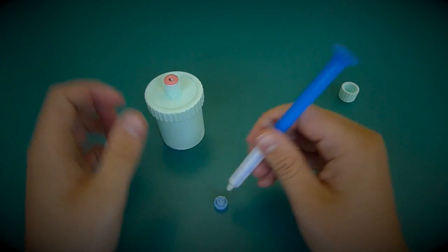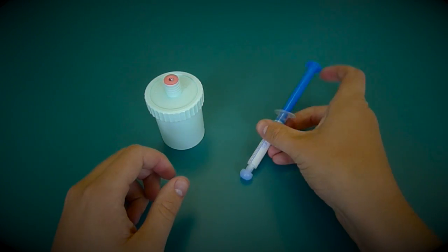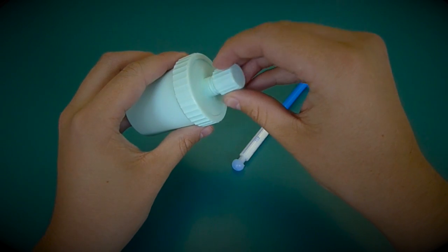Remove your syringe and place the tip cap back onto the syringe body and place the cap back onto the EMP jar.